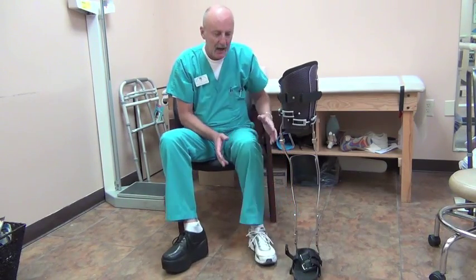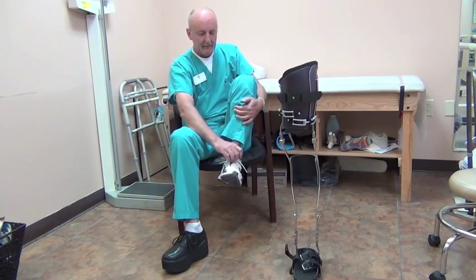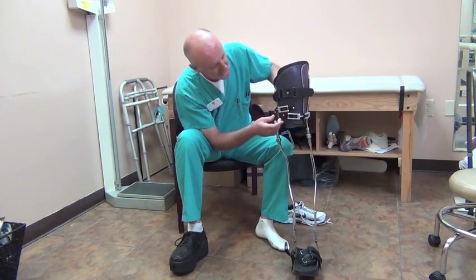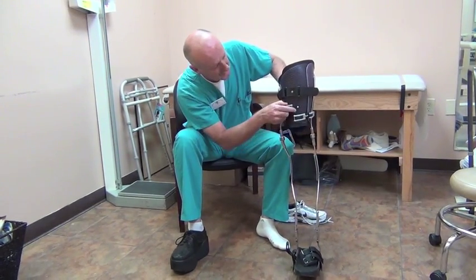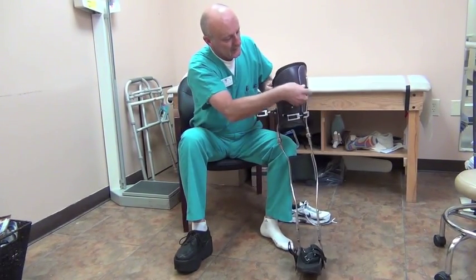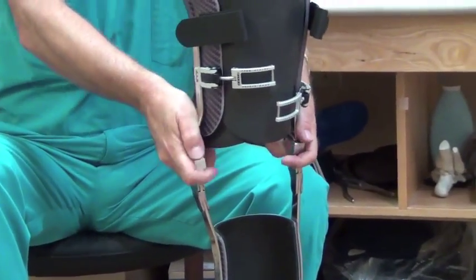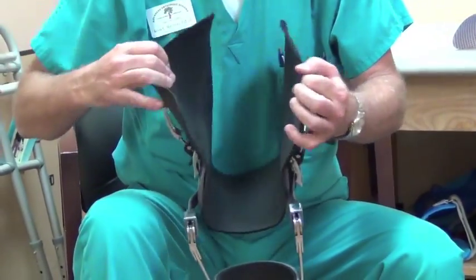How it works is through hydrostatic compression of soft tissue to carry the weight on the thigh as opposed to the knee. It's really a very simple design. You use few buckle closures so that you can get leverage for adjusting it. You use a floating tongue that makes the system work, which makes it much more comfortable than a fixed tongue, and we use an overlapping foam liner.